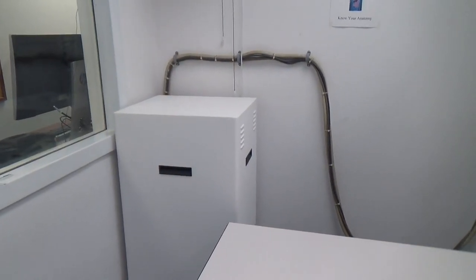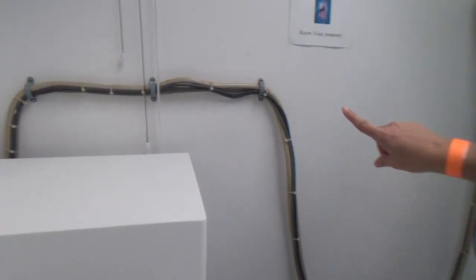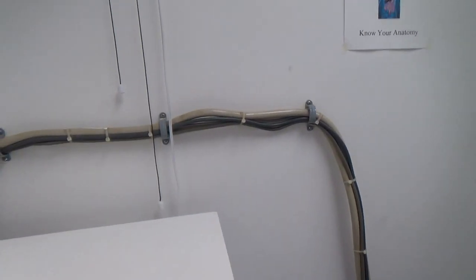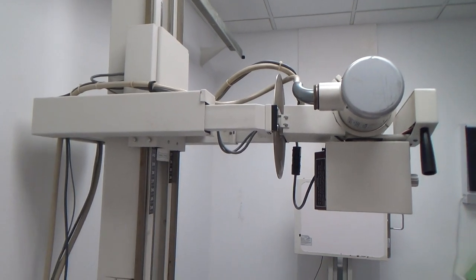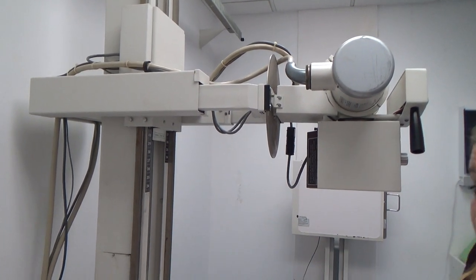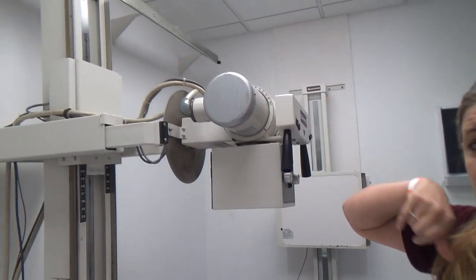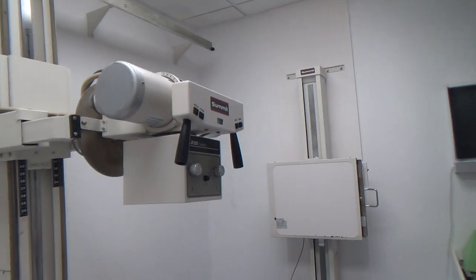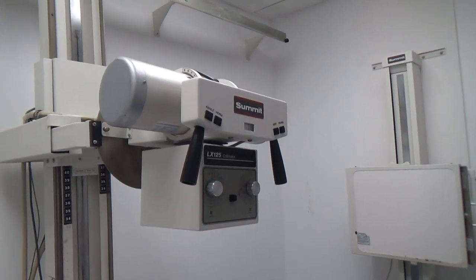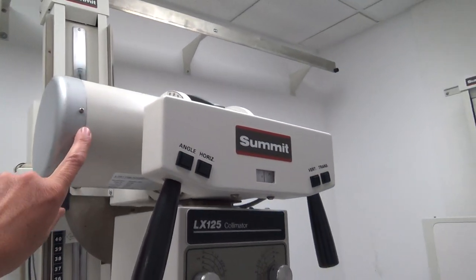Here's the transformer box right here. If you follow these wires from the transformer, it will take you directly to the actual tube. This is why we need this transformer — to be able to get the high voltage that we need in that tube to produce those x-rays. We'll all be talking more about this tube later on.